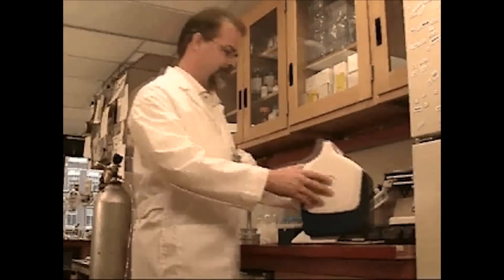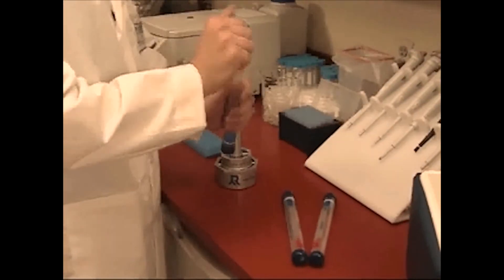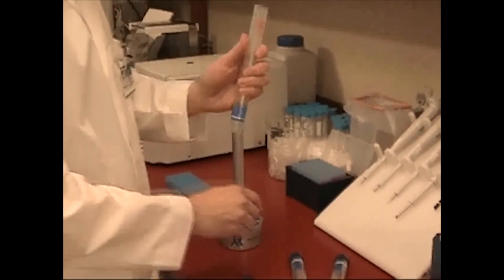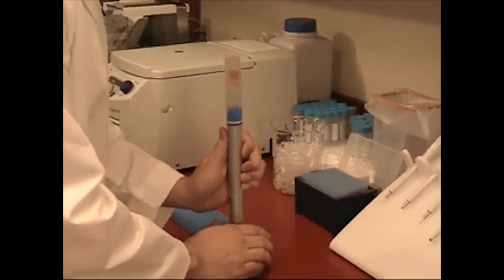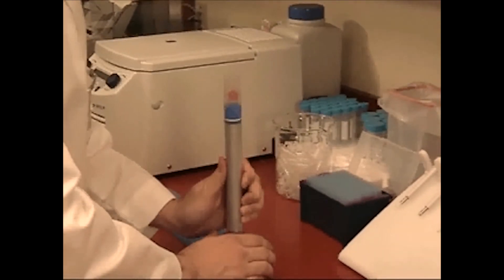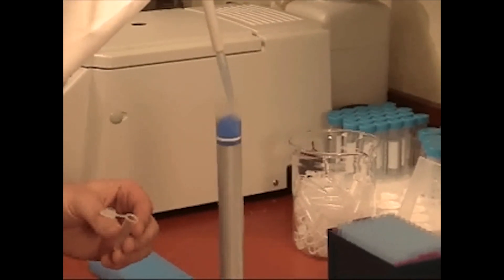In the laboratory, the technician allows the frozen samples to thaw and then slides the R tube over the specially designed plunger. What used to be an exhalation valve now functions as a syringe, sweeping the condensate off the collector's walls and into an easily accessible pool. The sample can then be used for assays as needed.